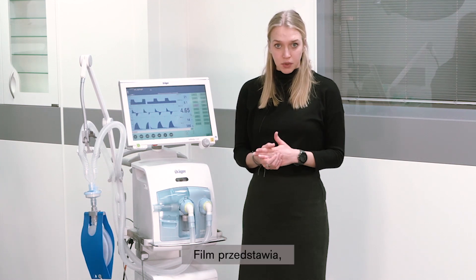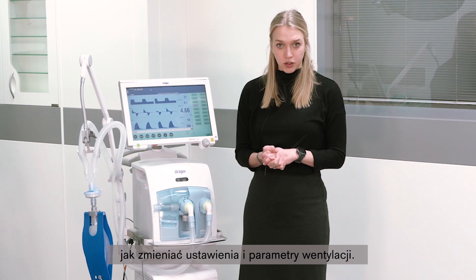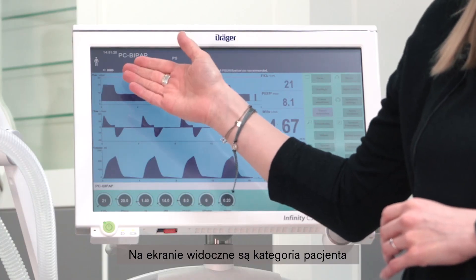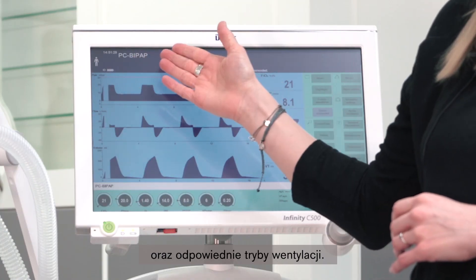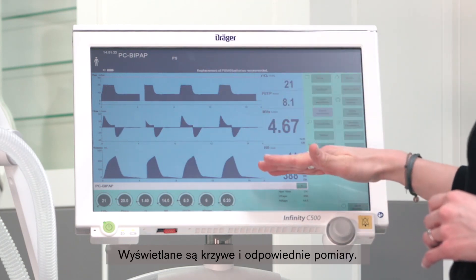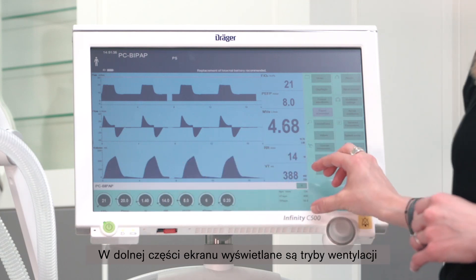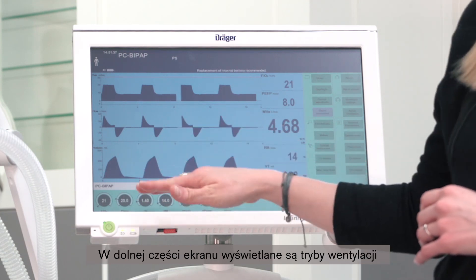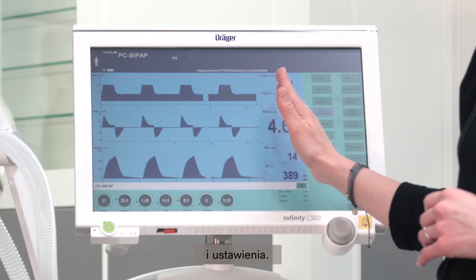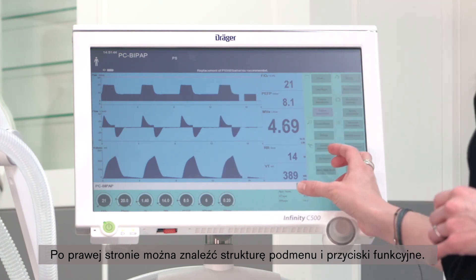In this video we would like to demonstrate how to adjust your ventilation settings and operation. On the screen you can find your patient category and your respective ventilation modes. You will find your waveforms and the respective measurements. In the lower part you can see your ventilation modes and your setting controls. On the right hand side you have further submenu structures and function keys.